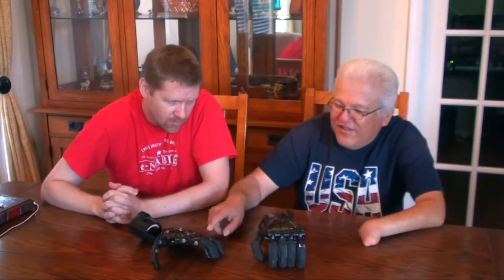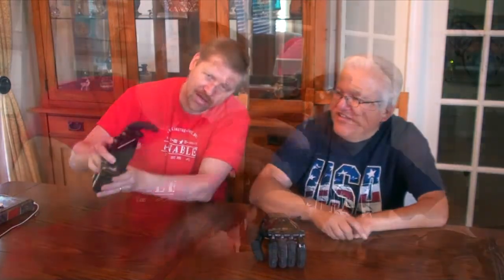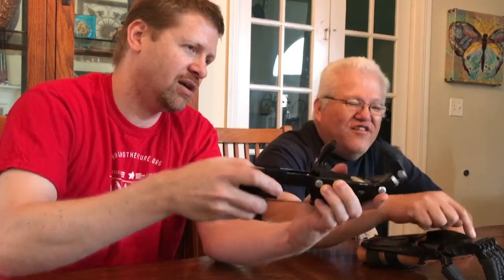Because I think when you reset these, I like the way the little finger comes in first. Good point — you're right. That little finger coming in a little bit sooner is the ideal gripping pattern. I might not have gotten that quite right on this one — this was my first attempt at assembling. Yeah, I can see that little finger isn't coming in quite enough.